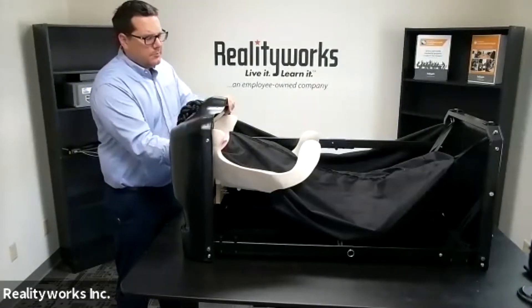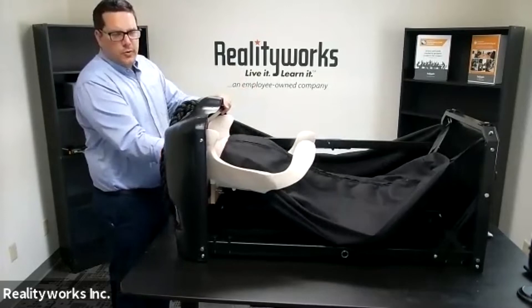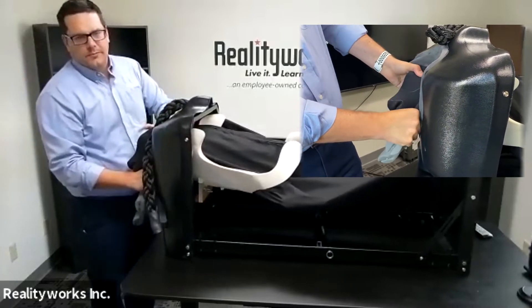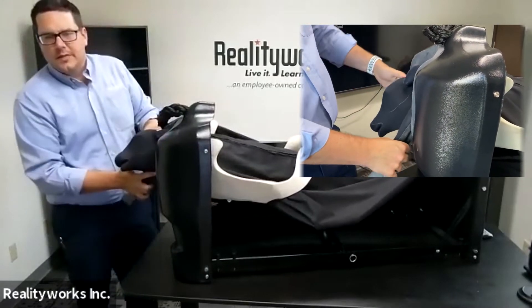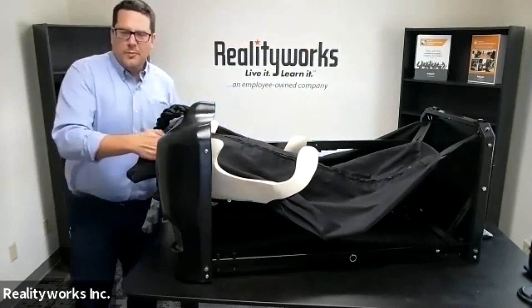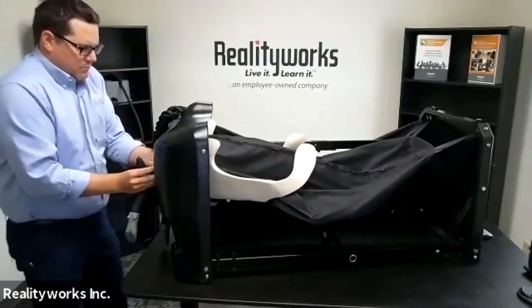Students can put on gloves and position themselves like they're doing the real thing. I can feel the head, feel for the legs, then start bringing it forward. It's starting to come out — there's the head of the calf being birthed. I can feel the pelvic girdle, feel the pull and how difficult that is. I can also feel the shoulders — they're getting stuck. I'm going to pull that out and interact and move this as I go.